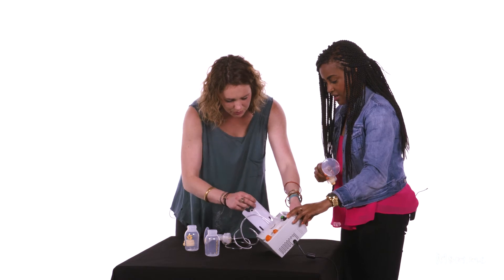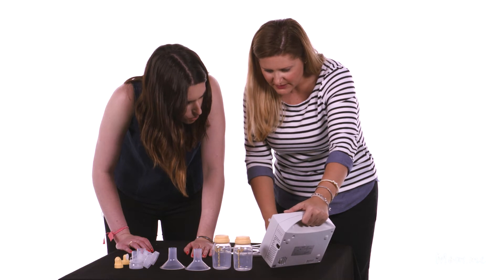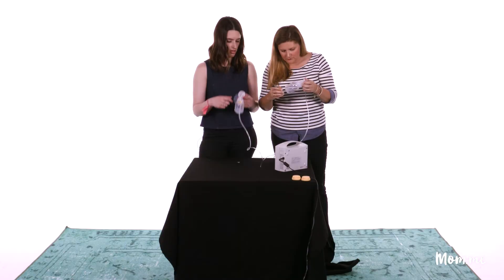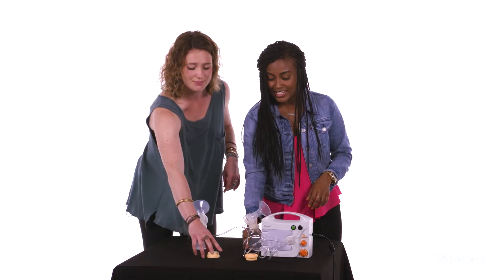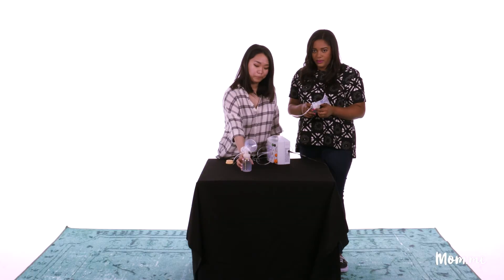Wait — play and record? Is there music involved in this? It's like Darth Vader in there, that's scary. This feels really nice. Hello? Not playing anything — this is the world's worst boom box. I thought it would actually hurt more. And that, ladies and gentlemen, is how you pump — how you pump those breasts. Horrifying.